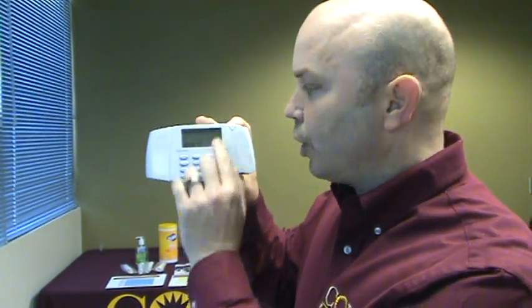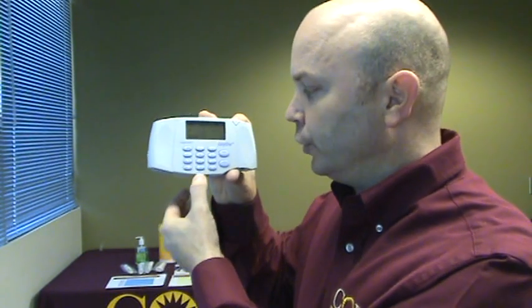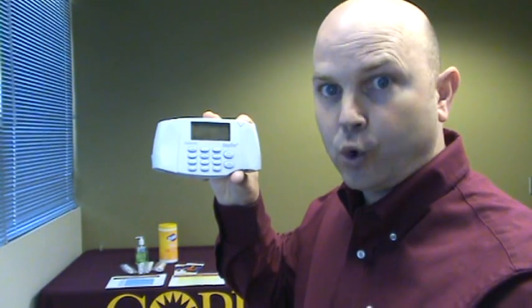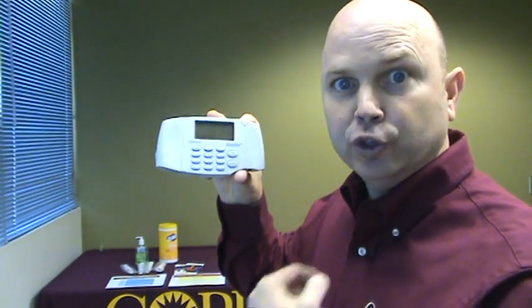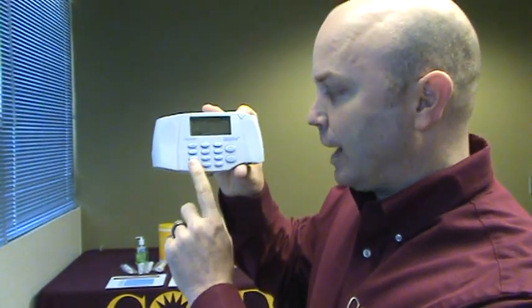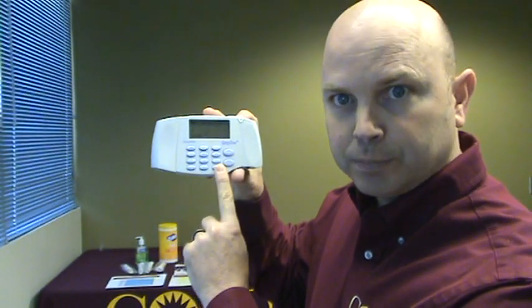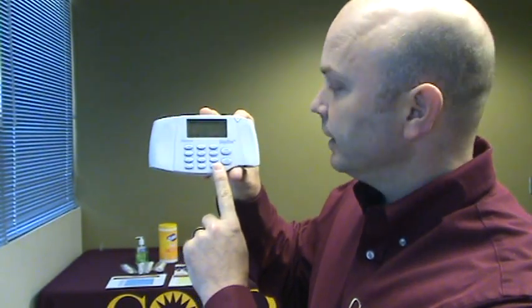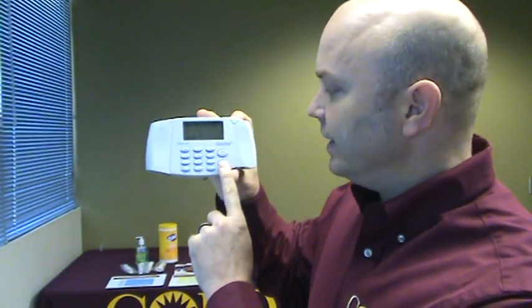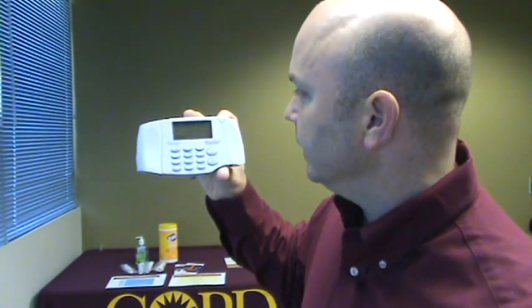If you are entering data and you made a mistake and want to go back a field, you press and release the escape key quickly and you'll jump up a field. You can also go backwards, backspace with the left arrow, forward space with the right arrow. And then enter will advance to the next screen item.